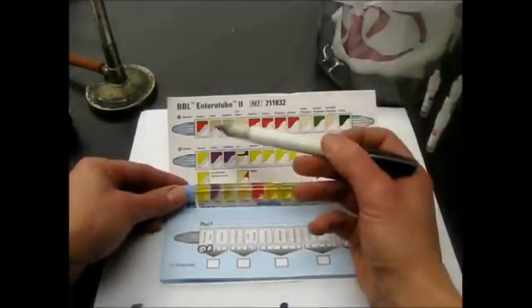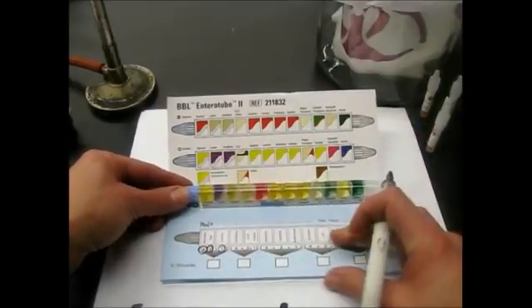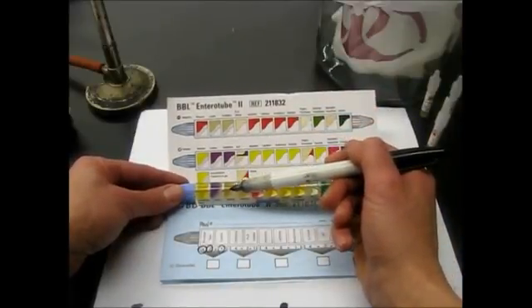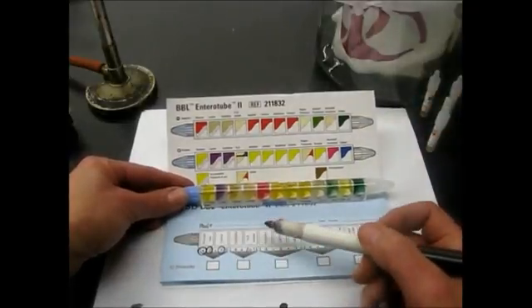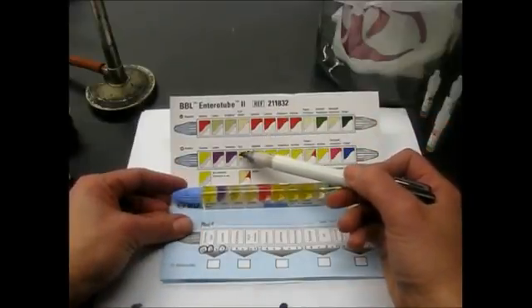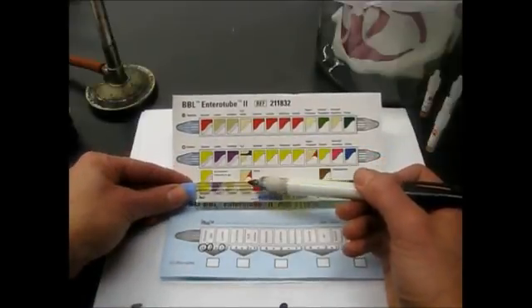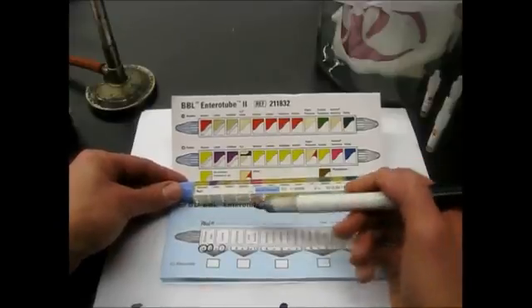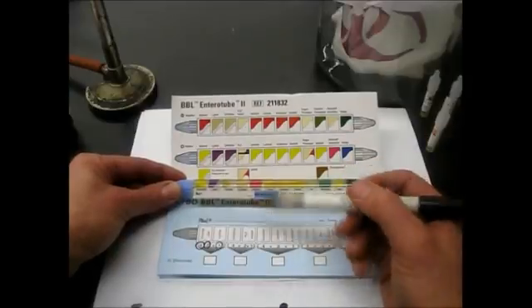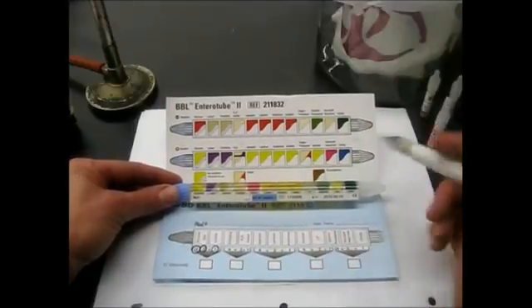Next test is lysine. So that's the negative, and purple is positive. Ours is purple, so I'm going to circle that number. Ornithine, purple is positive. Ours remained yellow, so we will not circle the number under ornithine. For the hydrogen sulfide indole test compartment, if it's black or any part of it is black, you will consider that a positive. Ours, there's no black in it, so we're not going to call that positive. I'm going to leave that uncircled. Now the indole test is something we do. We have to add a reagent to it, and we do that at the very end. So we're just going to hold off on interpreting the indole reaction.